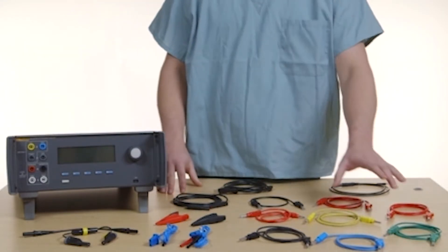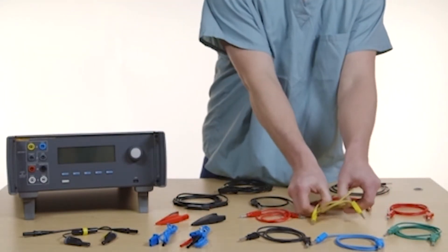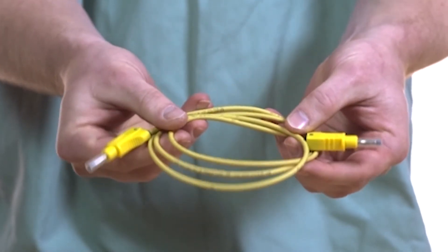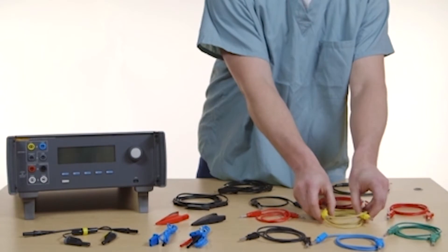The new color-coded test leads and stackable banana connections with retractable shields make it easier and safer to test by eliminating the need to create or improvise test connections.